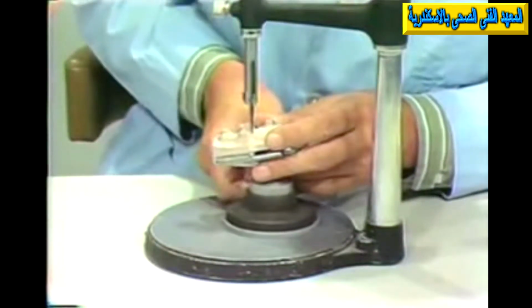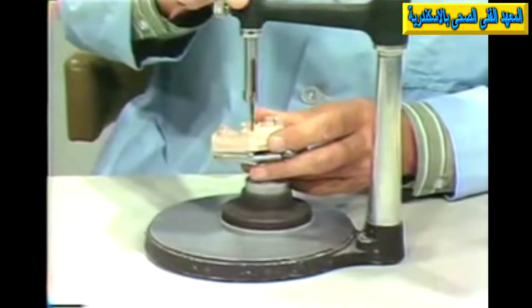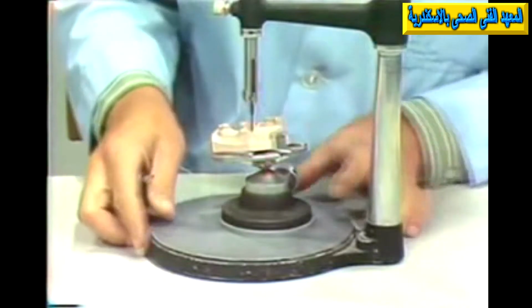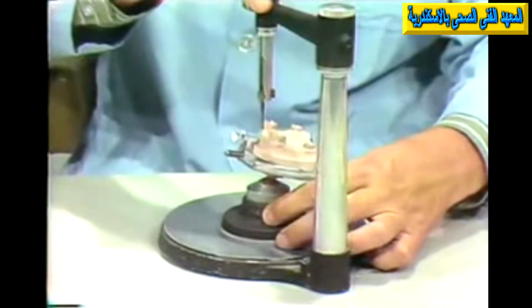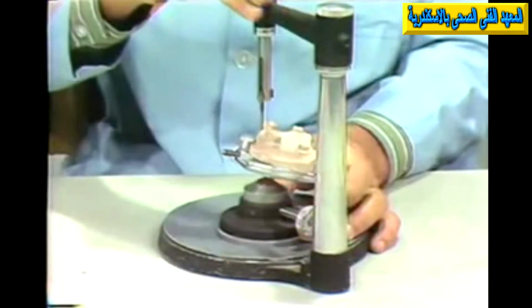And if we had an anterior situation here where the only area of, let me see if we can show this here, where the only area of retention was quite far anterior towards the mesial. It's a little difficult to show here. Let me tip that a little more so it's a little more obvious.